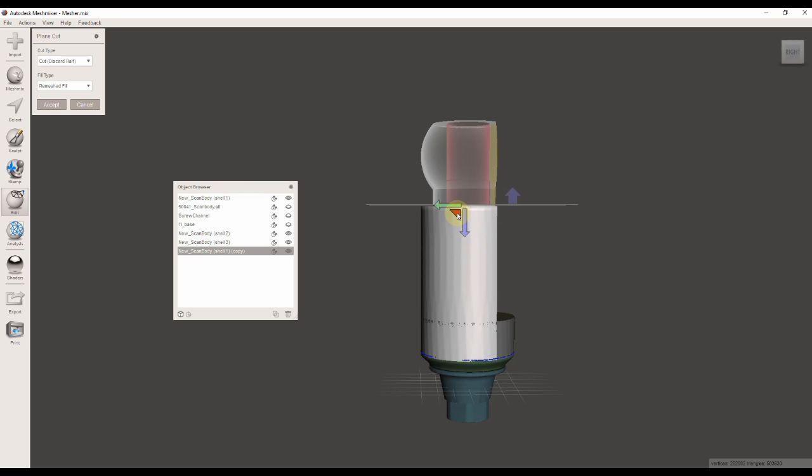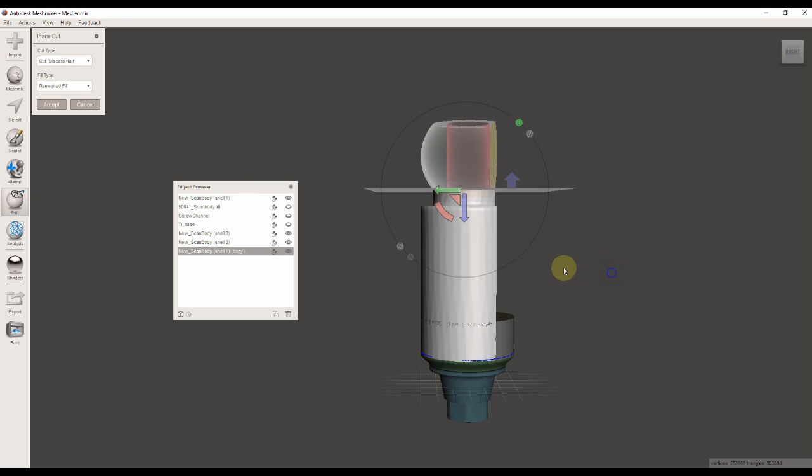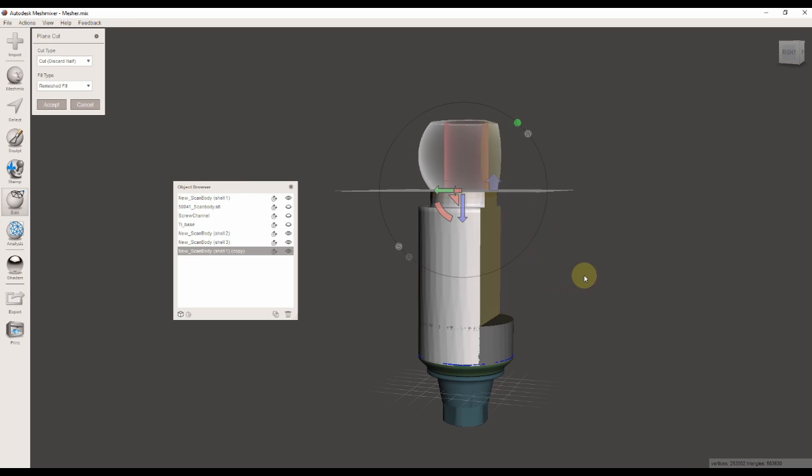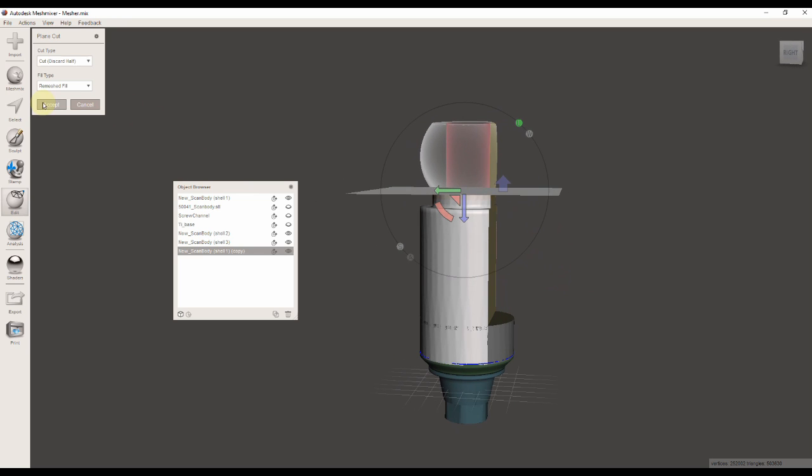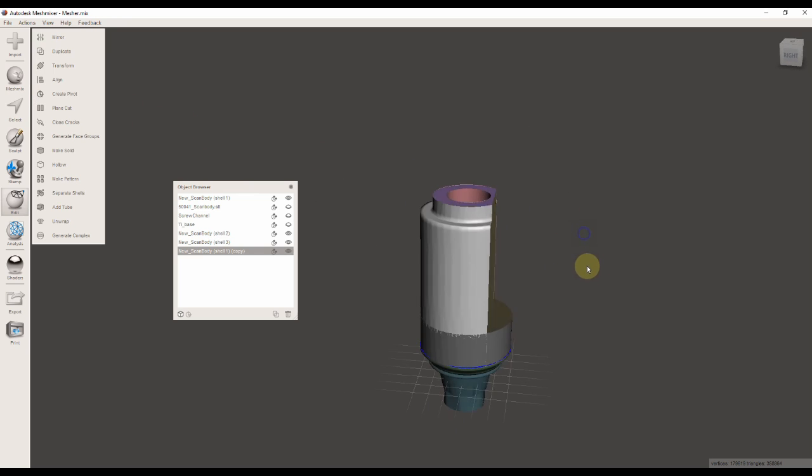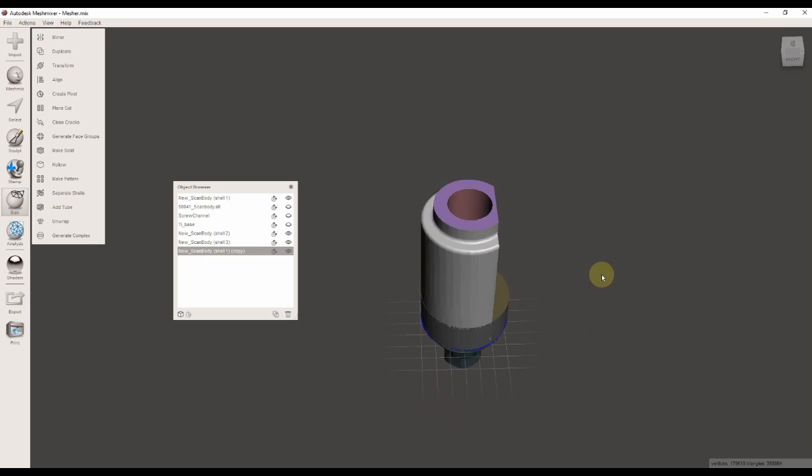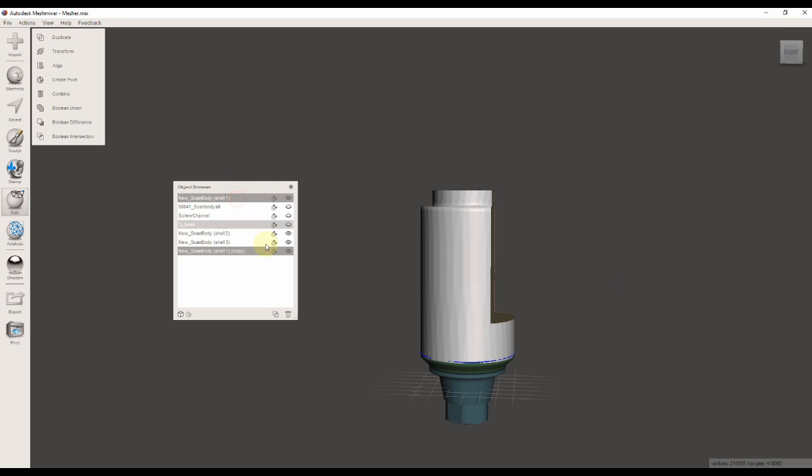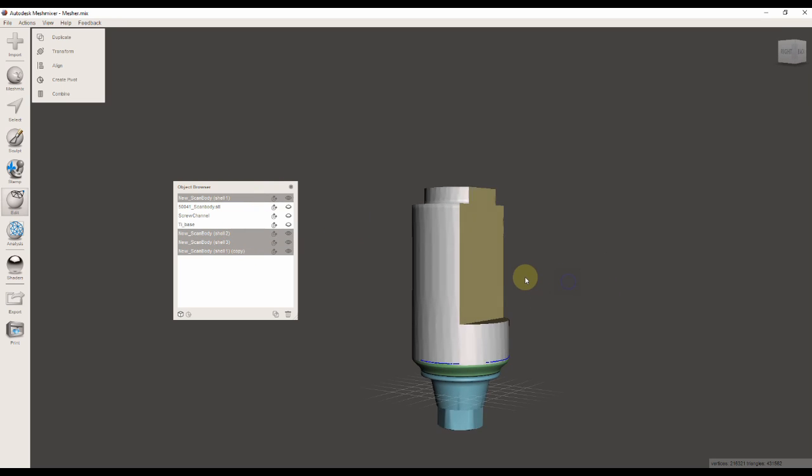I can cut it off right at the top, or I can leave the top part there. I can also leave a little bit of the ball head left over, or I can add a different ball head if I want to. In this case, I'm going to leave the little transition line there.